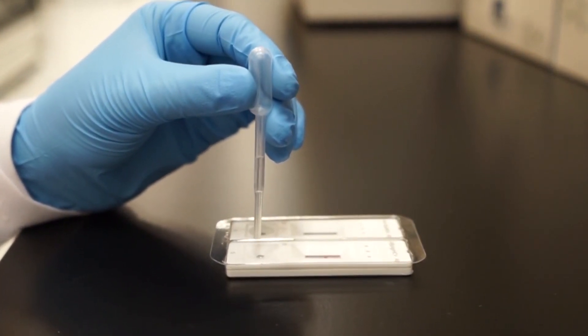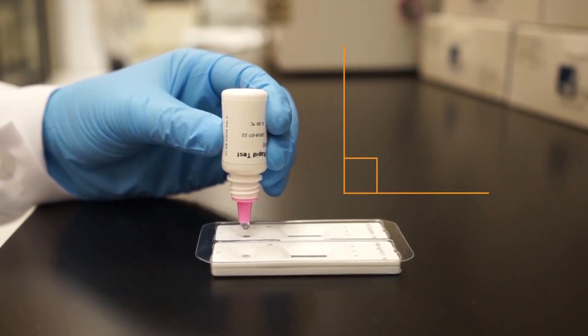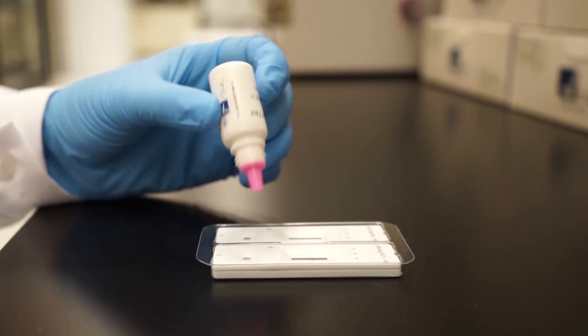Make sure that when dispensing the sample and the sample diluent that the dropper and bottle are held vertically. Make sure not to overload the sample well.